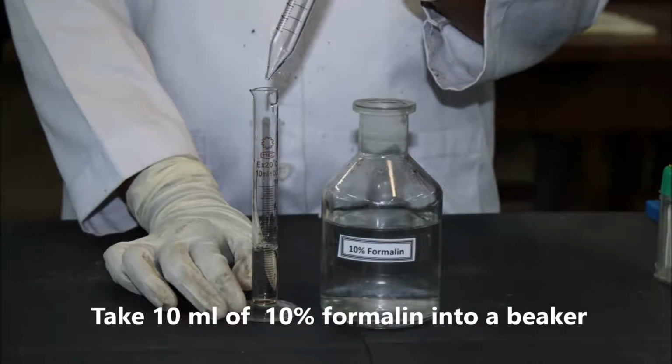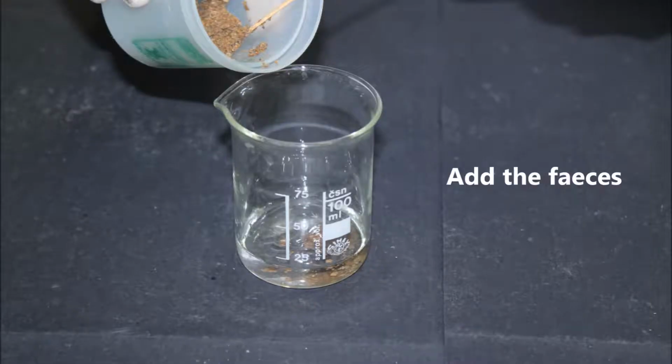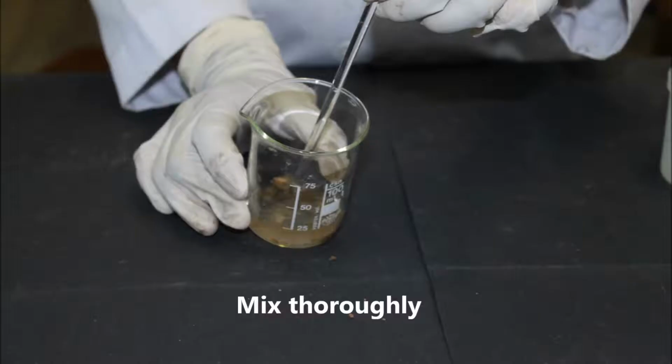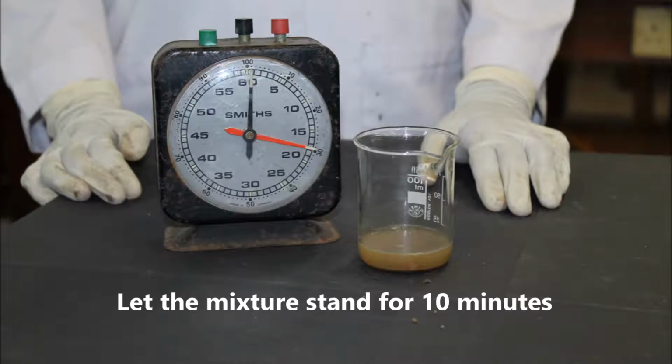Take 10 ml of 10% formalin into a test tube or a beaker. Add about 1 gram of fresh feces. Already fixed samples of feces can also be used, as I mentioned before. Mix the feces and formalin thoroughly to make a suspension. Let the mixture stand for about 10 minutes.